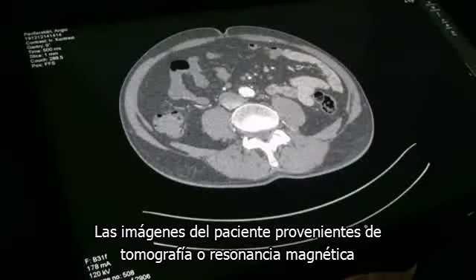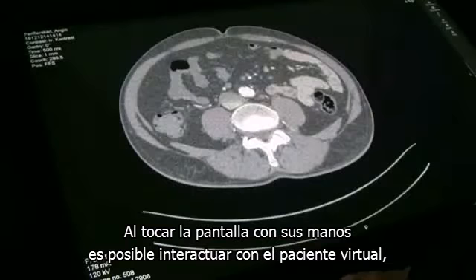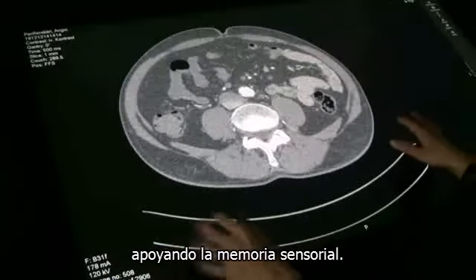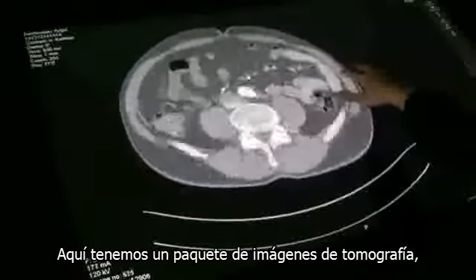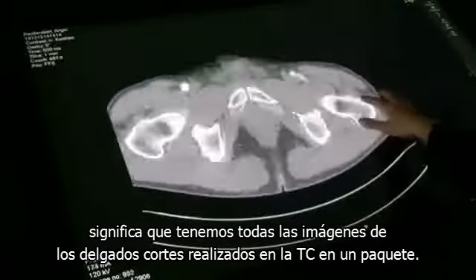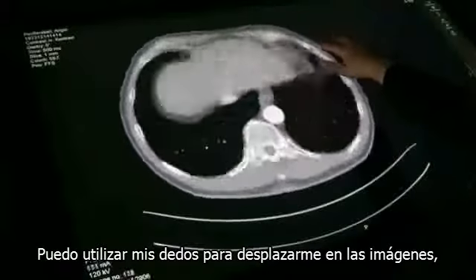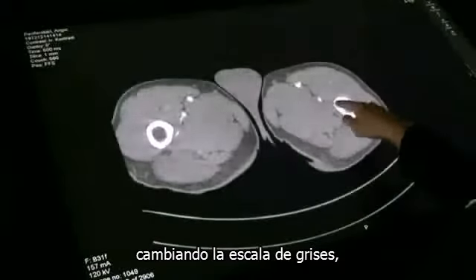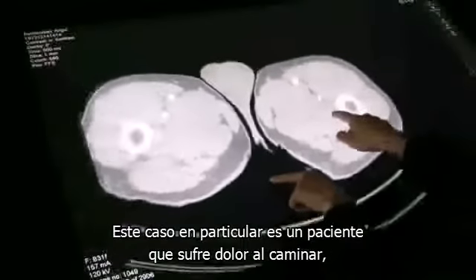Patient data from CT and MR scan is used to render a 3D volume. By touching the screen, you can interact with the virtual body with your hands, thereby supporting your tactile memory. Here you have a CT image stack. This means that you have all the thin slices from a CT examination displayed in one stack. I used my fingers to scroll through the images, changing the grayscale and zoom up and zoom down.